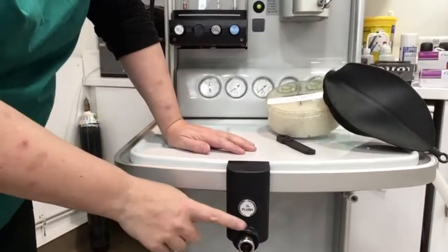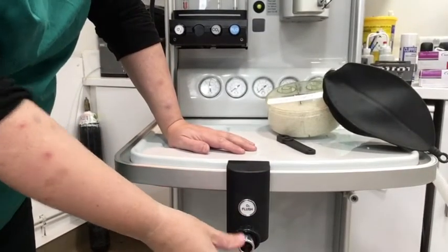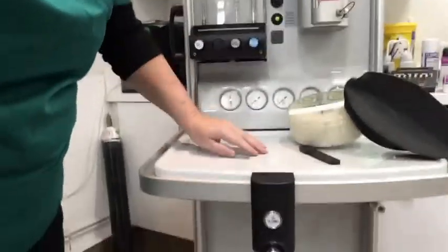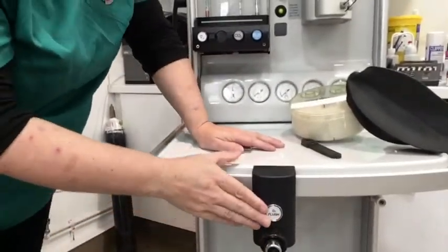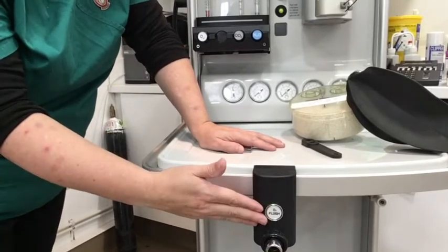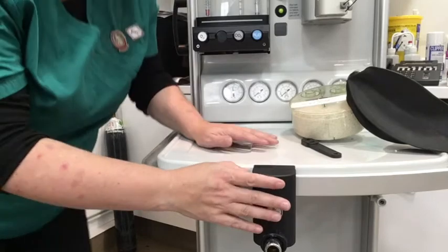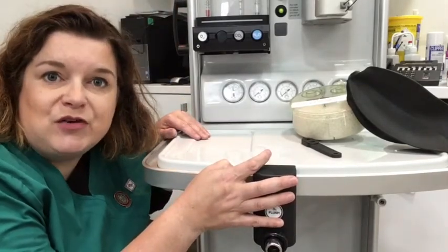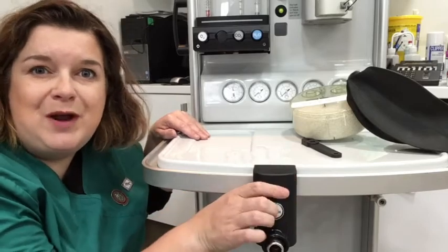The oxygen flush is usually located very close to your oxygen outflow, or sometimes it can be very randomly located up here. This one's here. This is something that you can ask the examiner — you could say, where is my emergency flush? Because that is a standard piece of equipment; that's not you asking for specialist knowledge because you know what it is. So I'll press it.